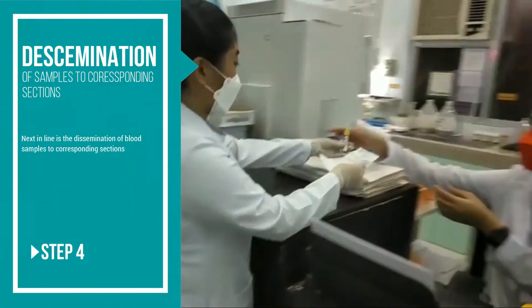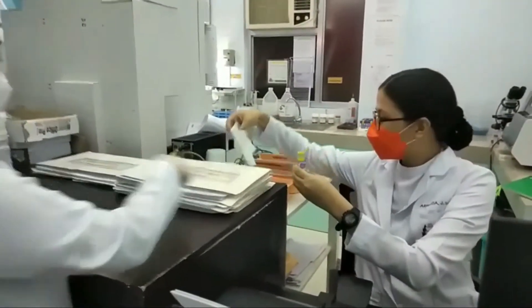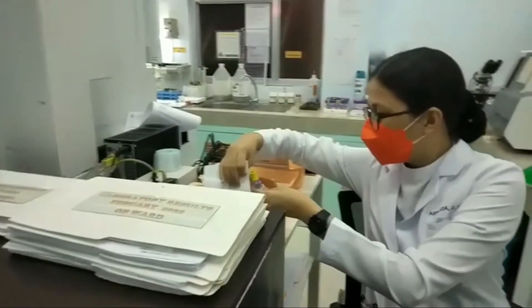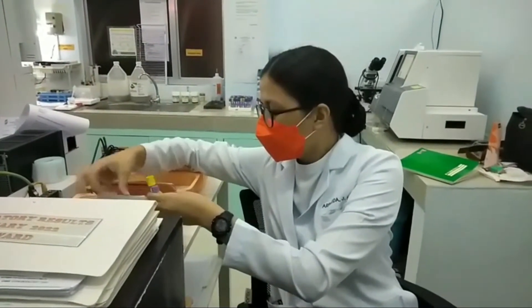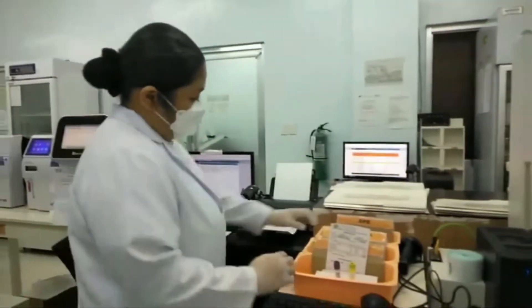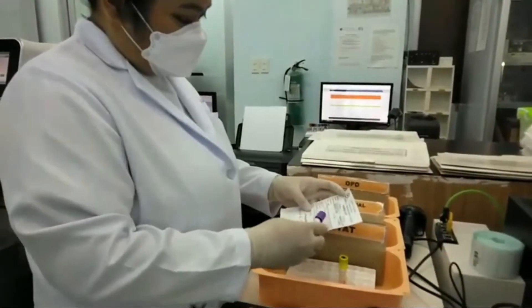In performing the analytical phase, inspect both the request form and patient sample to verify that both information coincides.